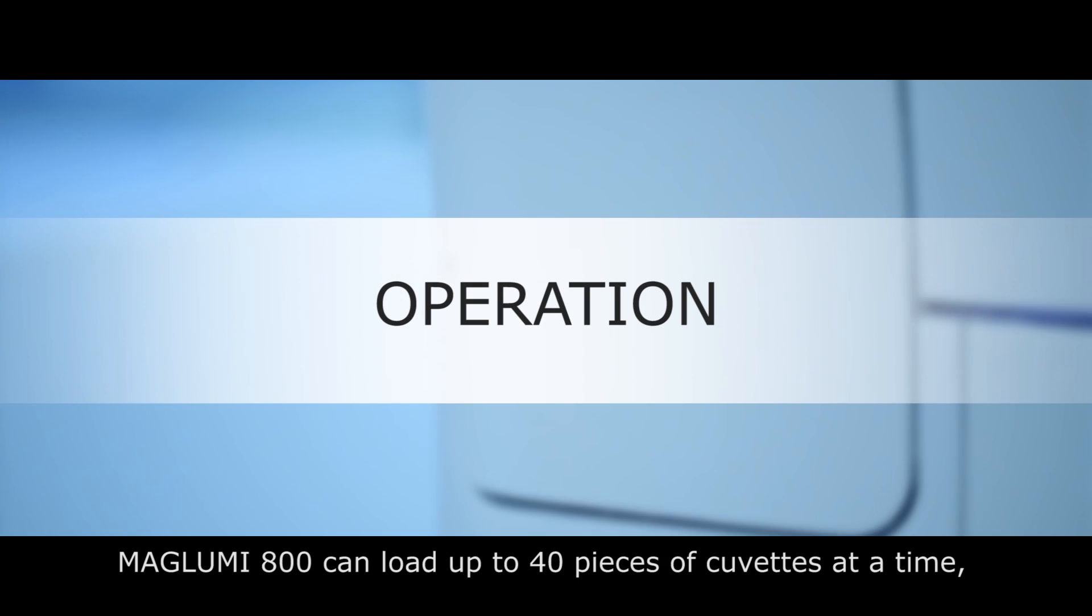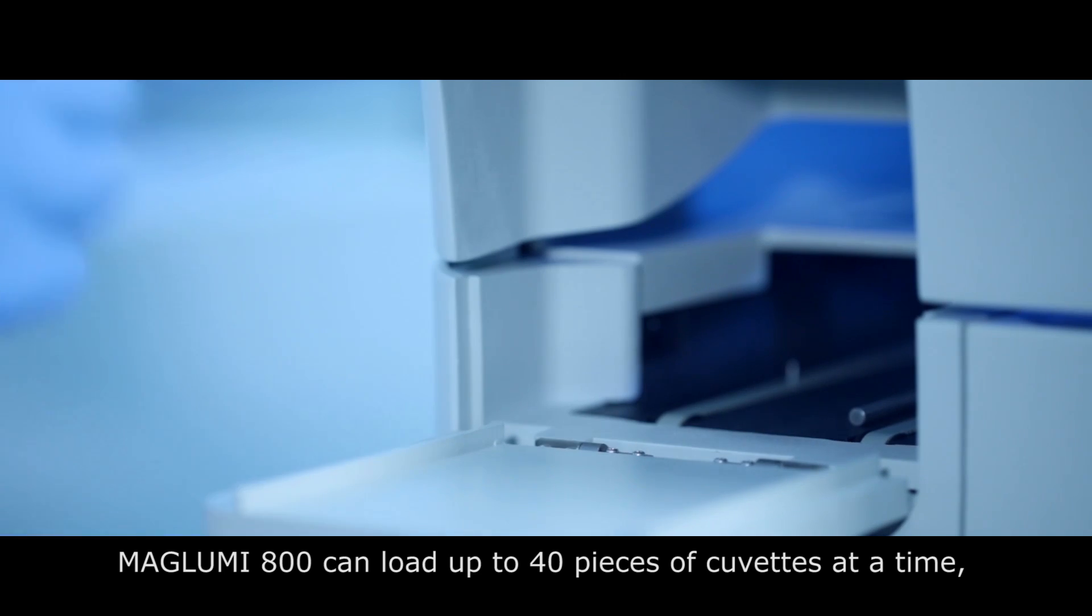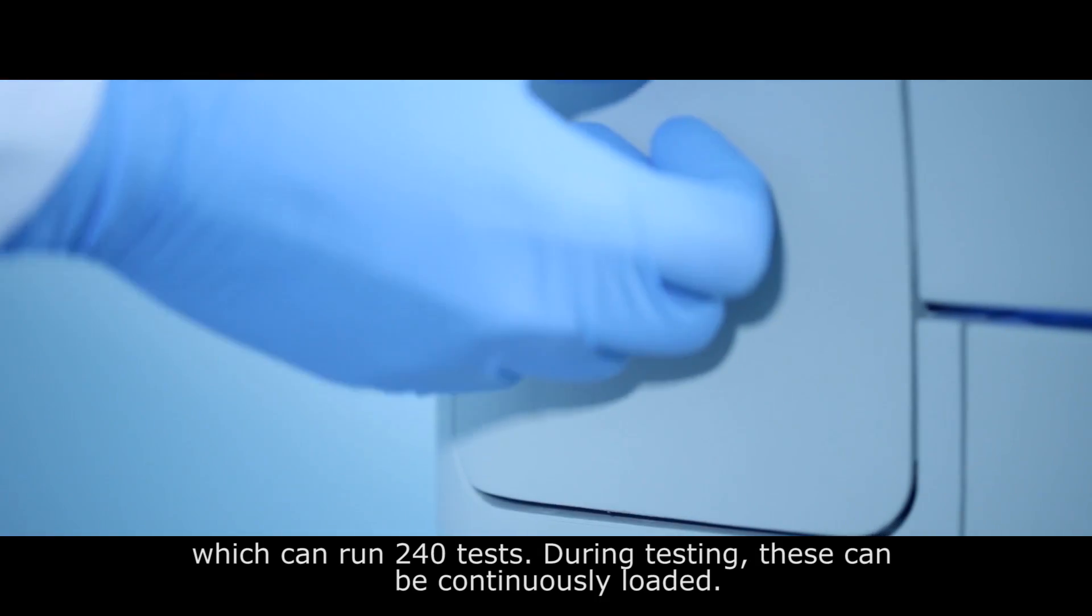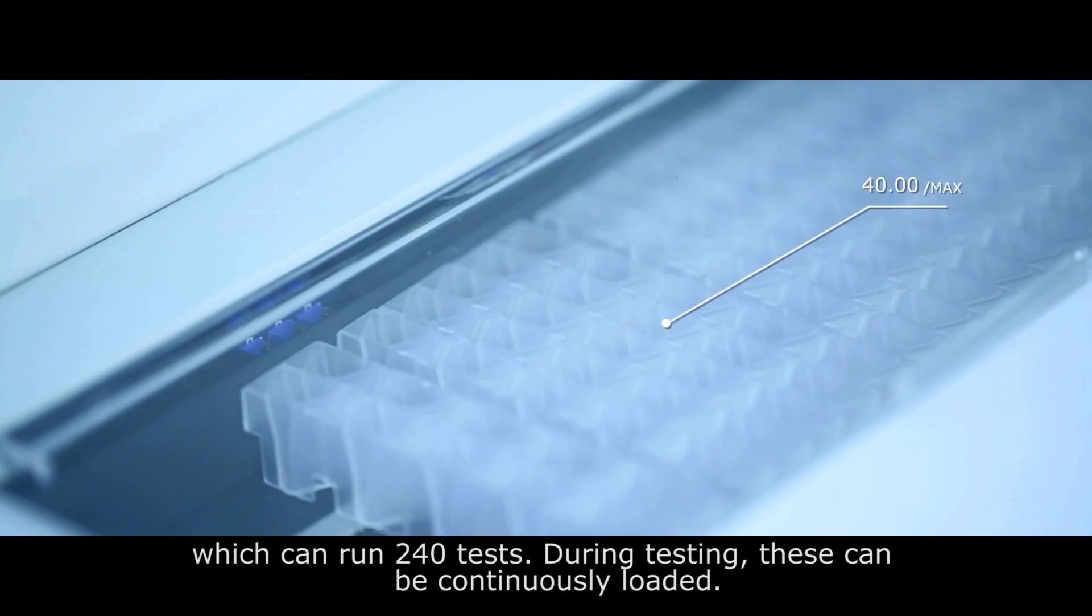Maglumi 800 can load up to 40 pieces of cuvettes at a time which can run 240 tests. During testing these can be continuously loaded.